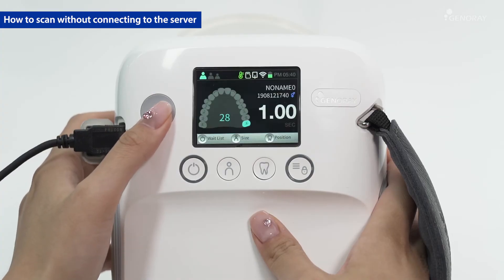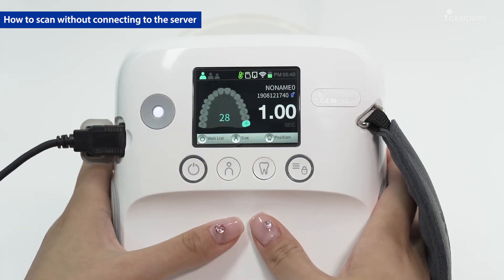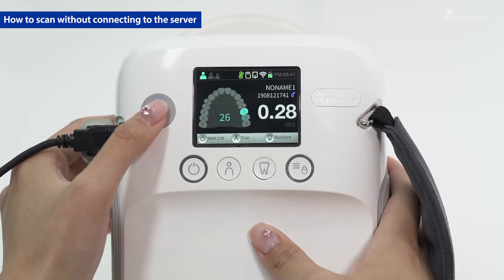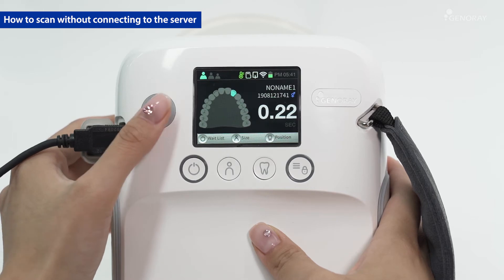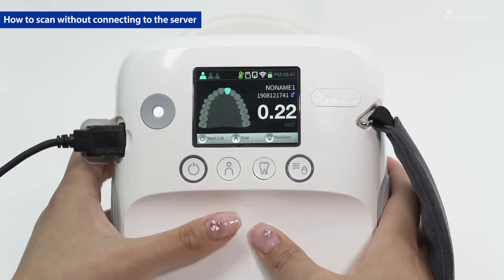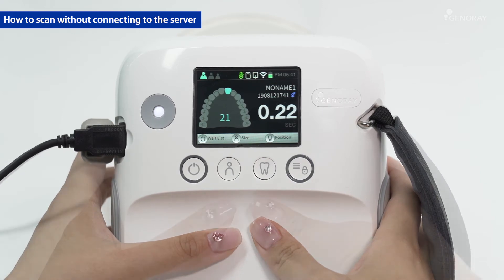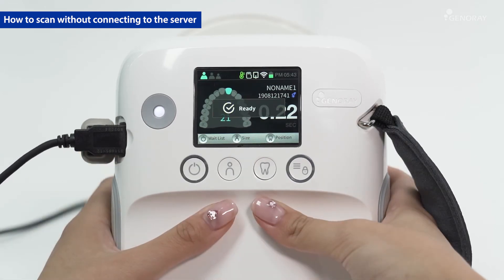Register a new patient or select from the patient list. If you select a tooth position, the exposure time will be displayed.